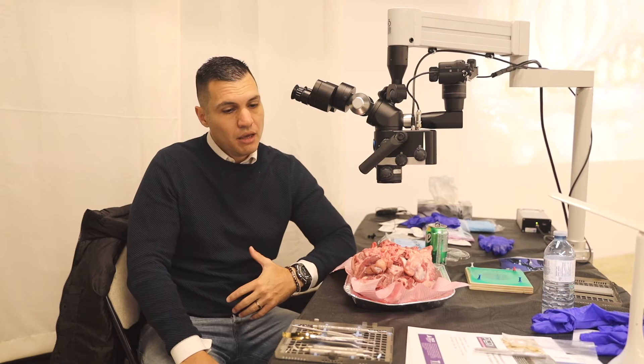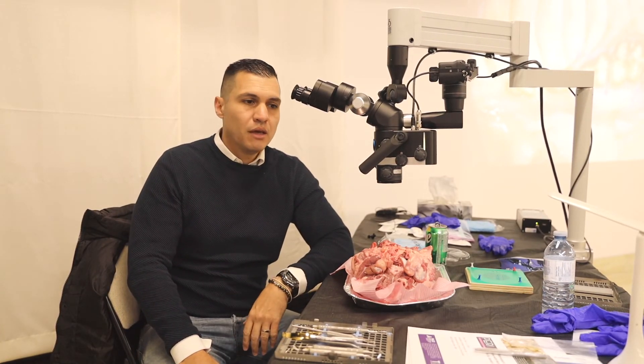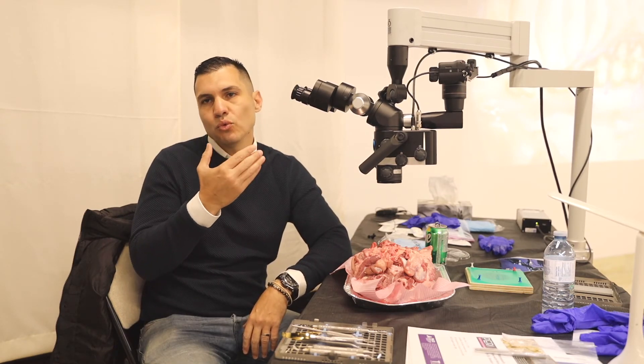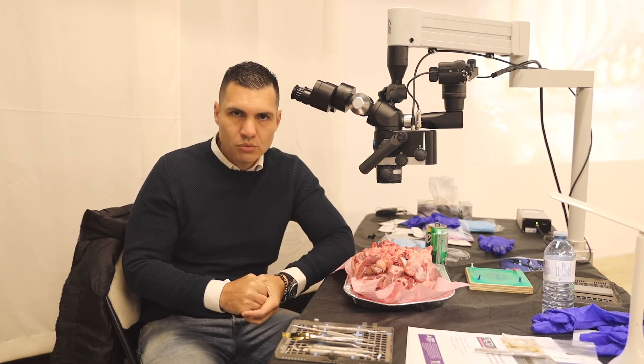That's the best for me, and also the broadcast to the screen is extraordinary. I'm more than happy to work with Sinca here, and with a microscope from Germany. Thank you so much.